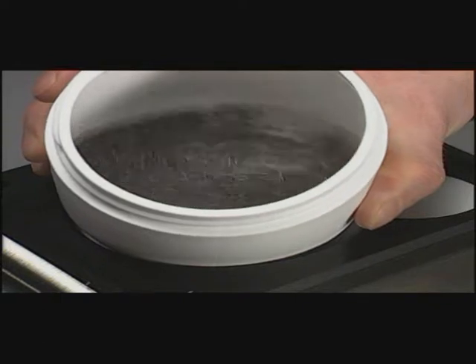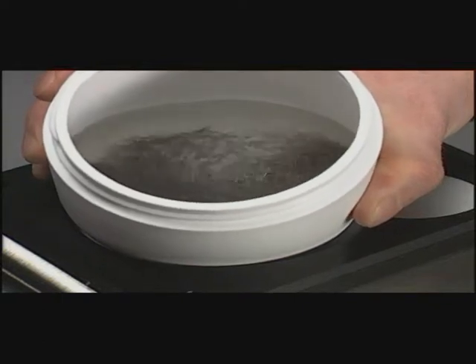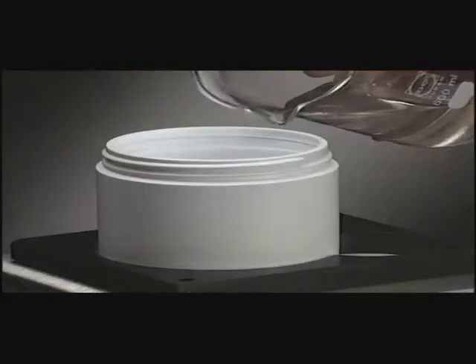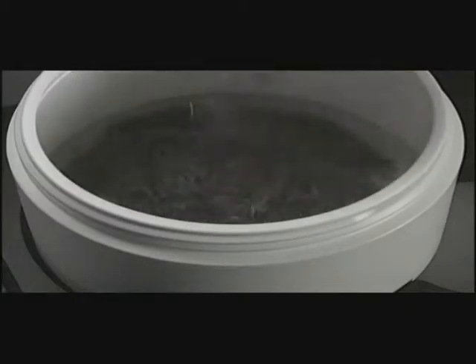The MicroClean is based on rotating magnets, which impel rounded steel pins. A mixture of tap water and cleaning concentrate is used for cleaning. The steel pins and then the denture are added to this mixture.